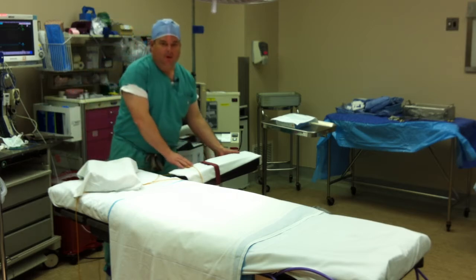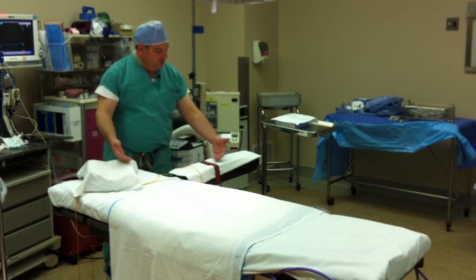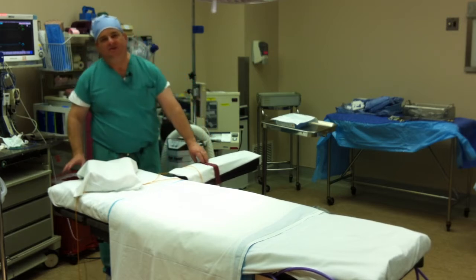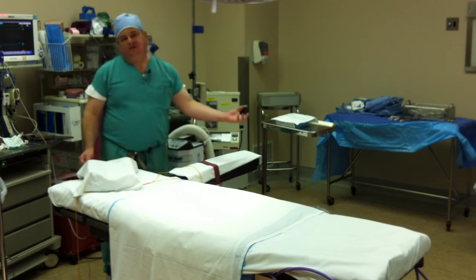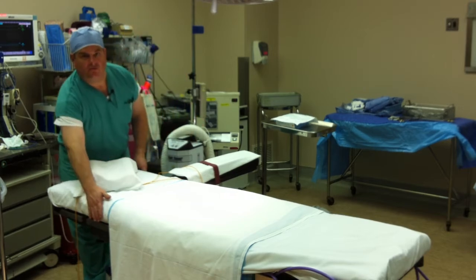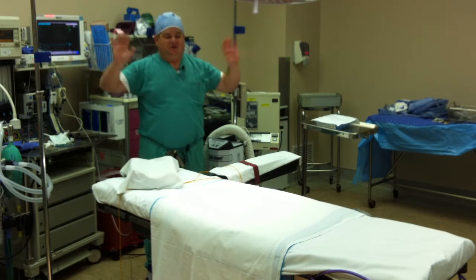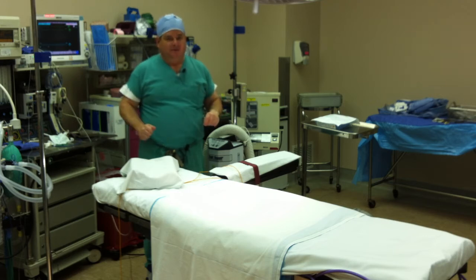This here is an arm board, and what's going to happen is when you lie down, they're going to have you lay your arm on this. There's a little Velcro strap that's going to hold your arm in place. Now this sometimes is difficult for people that are claustrophobic, but this strap is not tight. It's really there just as a reminder so you know not to pick your arm up. Once we get you on the table, we'll put another arm board over on this side so that you'll be basically lying like this, which is kind of a little freaky for some people, but try to relax. Remember, we've got everything under control and you're doing fine.